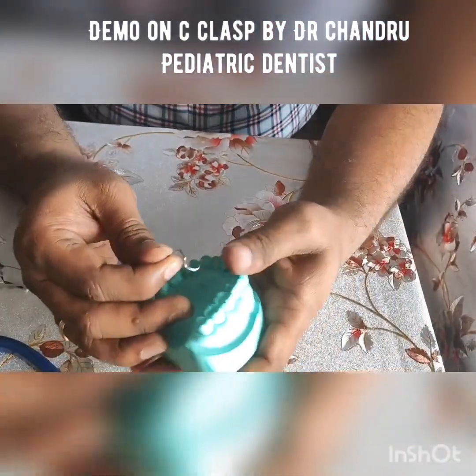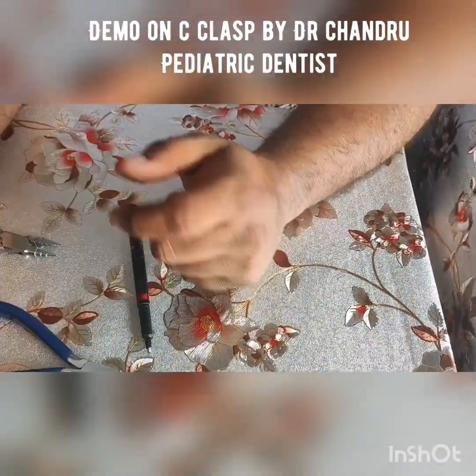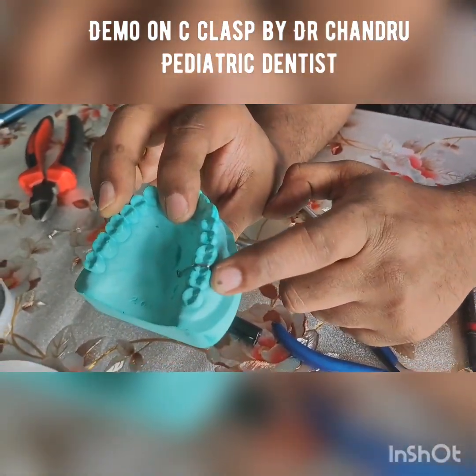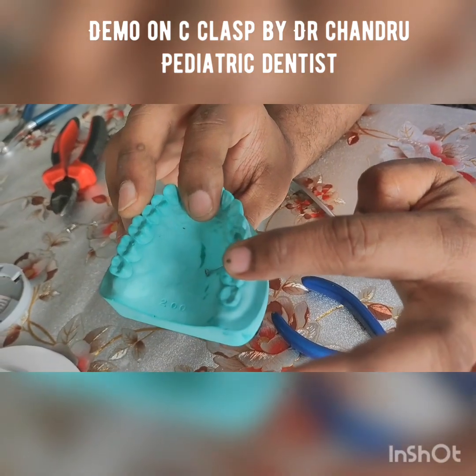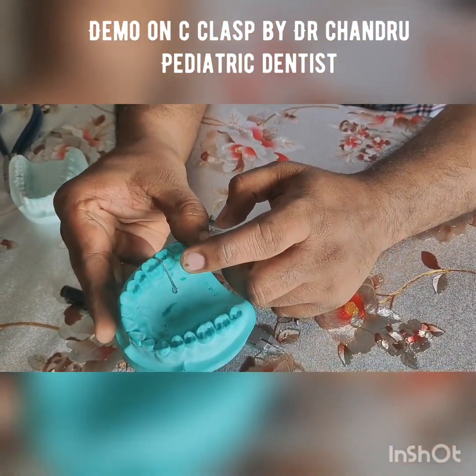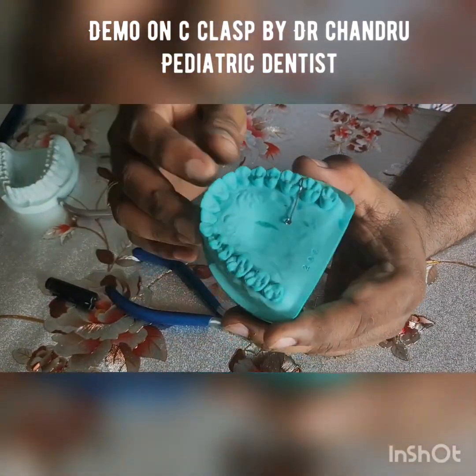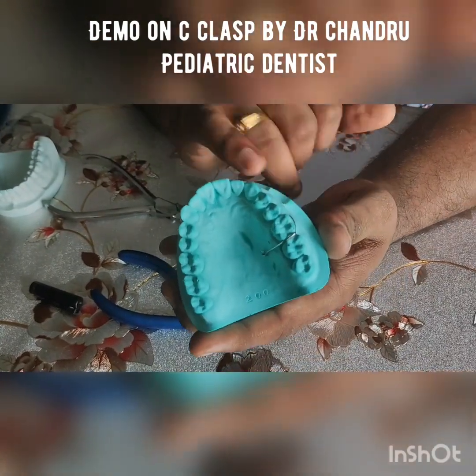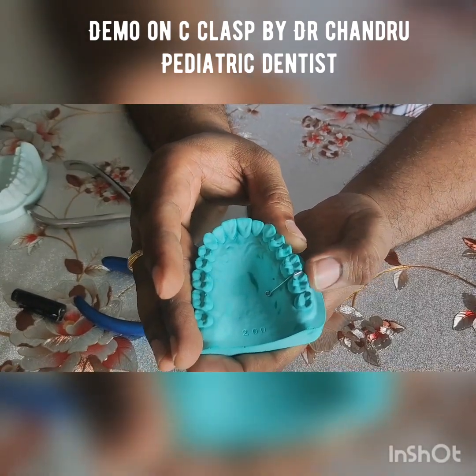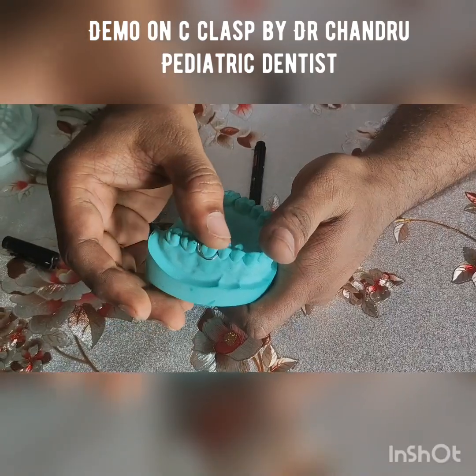You can see that now the wire has been engaged from the mesial undercut to the distal undercut, to the embrasure areas, running onto the occlusal surface, passing from the occlusal surface and getting adapted to the palatal surface. So the qualities of a C clasp should include: it should engage the mesial undercut, distal undercut, passing in between the embrasure area without any space, running onto the occlusal surface without any occlusal interferences.